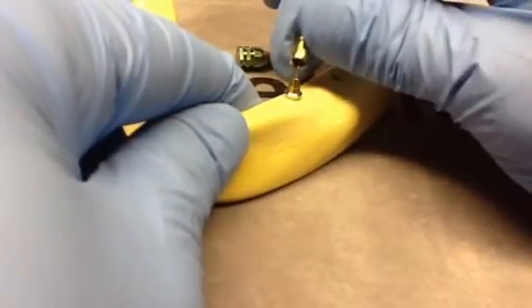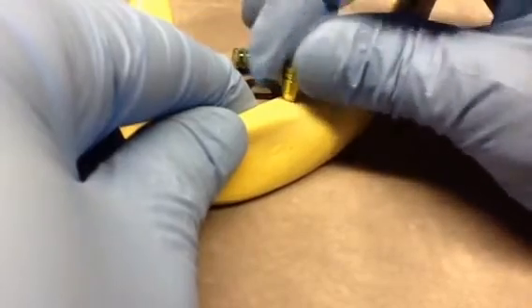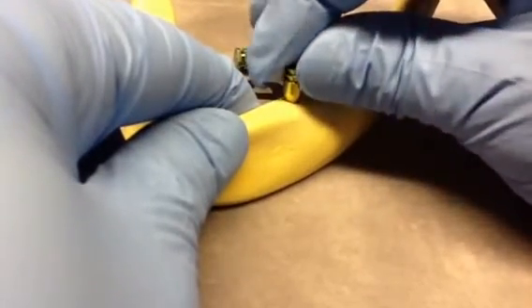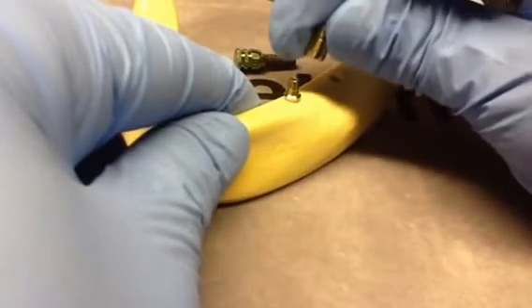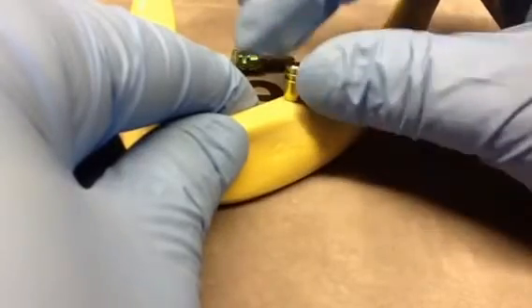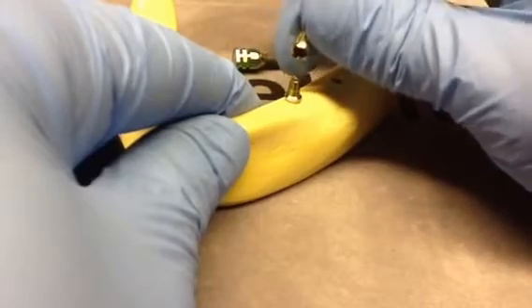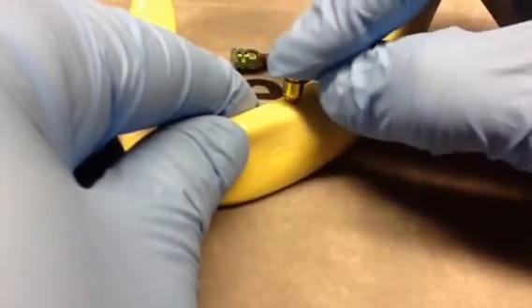The color coding system is the same as what you have become accustomed to. The wide neck transfer coping comes in a 4 and 5.5 mm height, with the same color coded system — green for the 4.0 and brown for the 5.5 height.